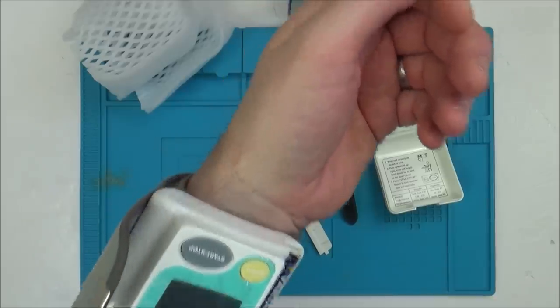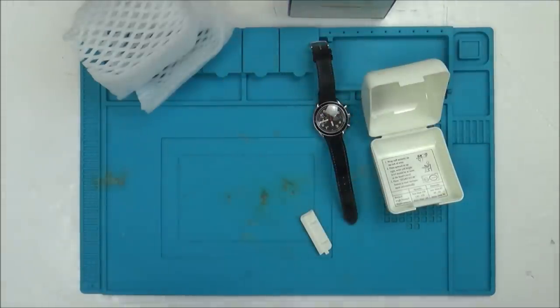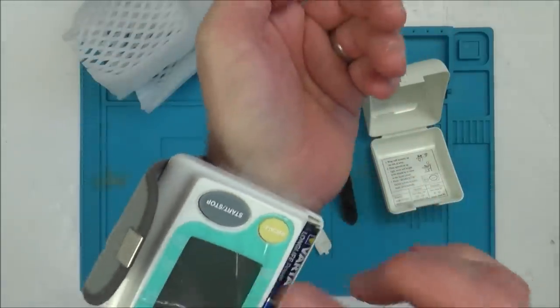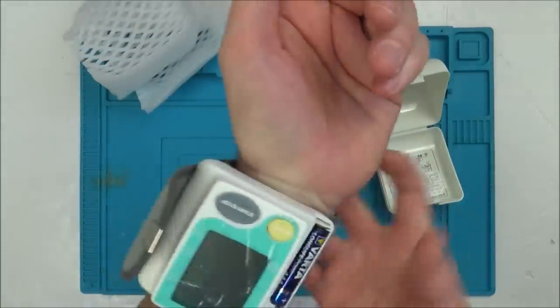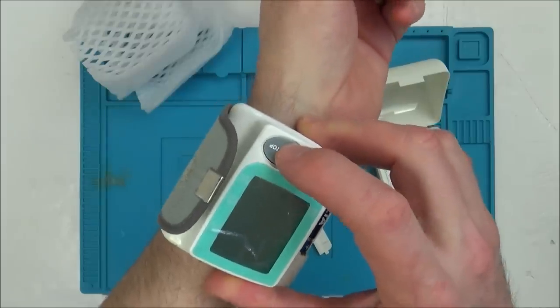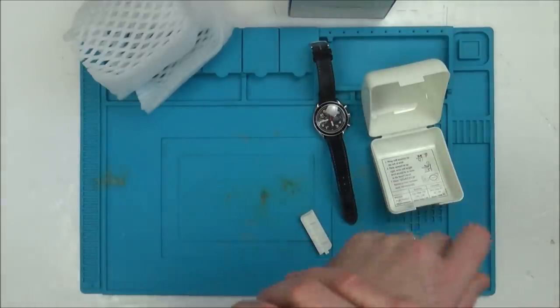It failed. It's come up with error. So it got tighter and then it just seemed to fail. I mean it felt pretty tight to me but it just seemed to fail. Then let's try it again - let's do it even tighter on my wrist.